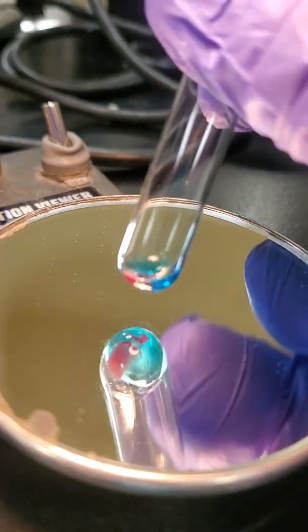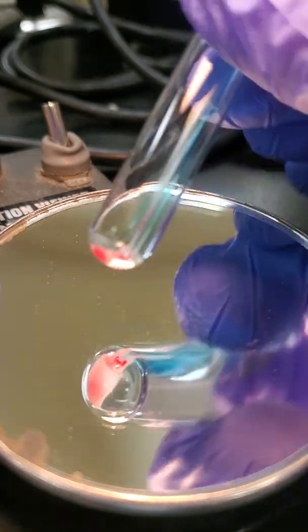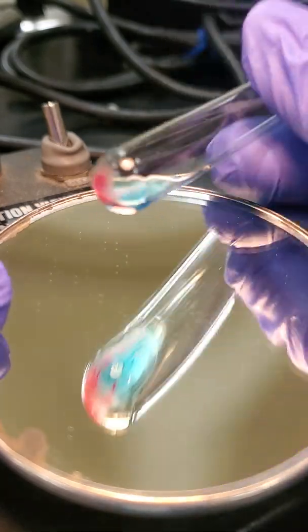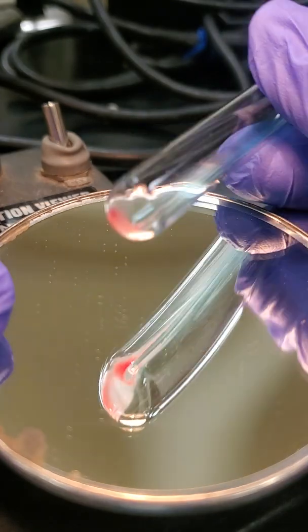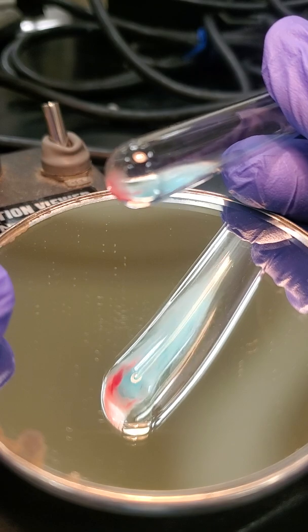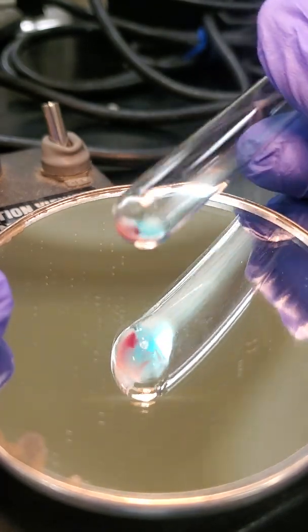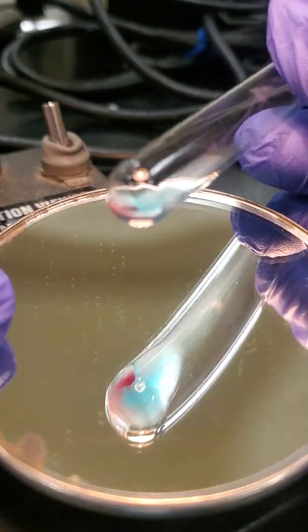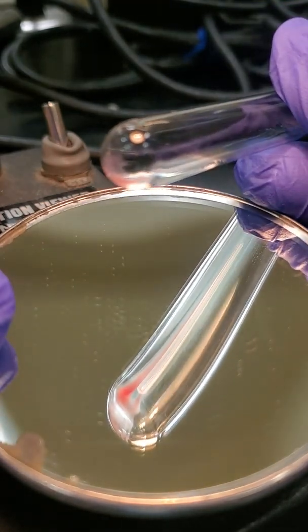And you can jiggle it a little bit if you need to get that off. And again, we're just going to keep rocking it until that cell button is off the side of the tube. And if you notice, this is a negative reaction. If you look at it, it's a real smoky look. The red cells are just dispersed. It almost looks like a curly mustache when it rocks back. So that's a negative reaction.